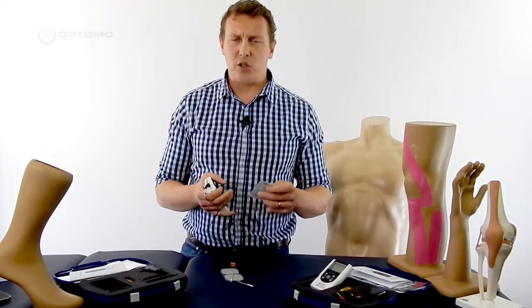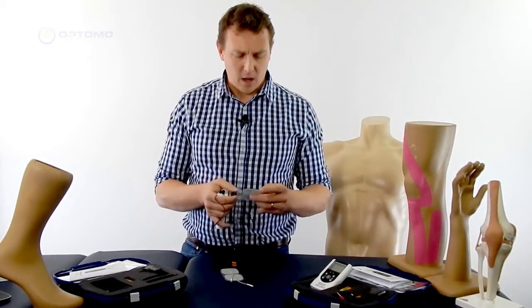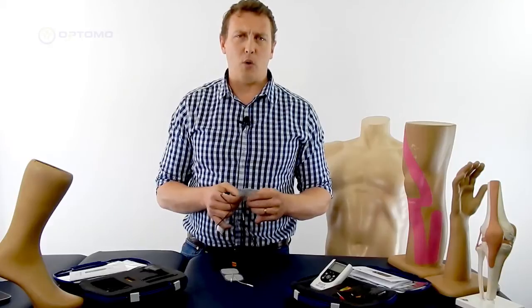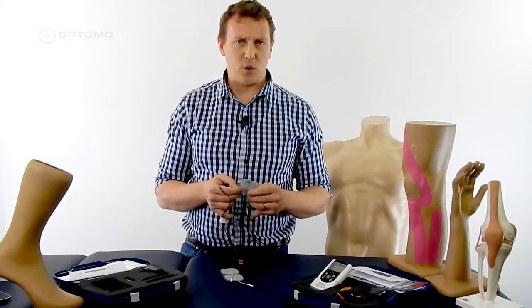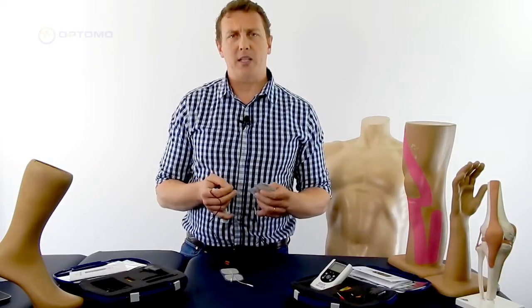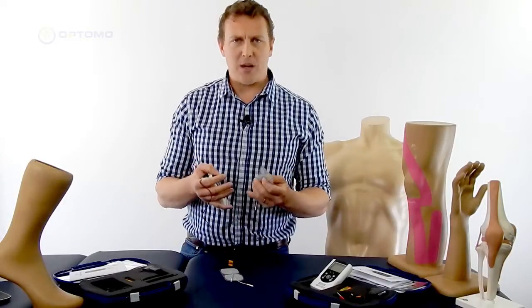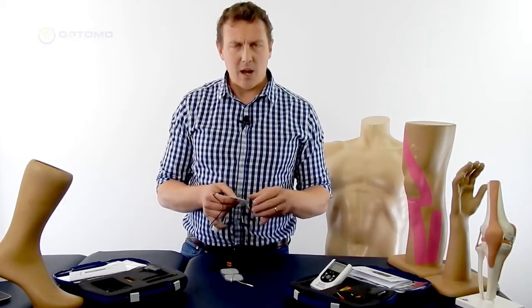With a TENS machine it's just a matter of placing the electrodes around the site of pain, but with a muscle stim it's really important to be guided by your physiotherapist or physician about where to place the electrodes to achieve the best contraction of the muscle.